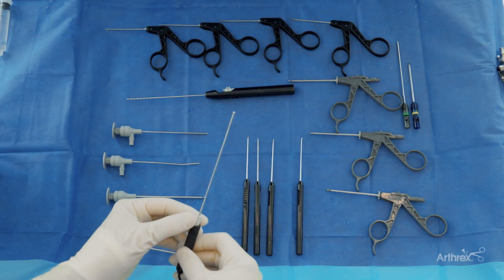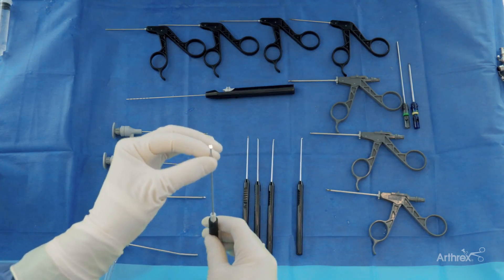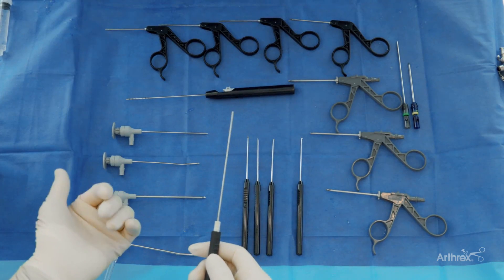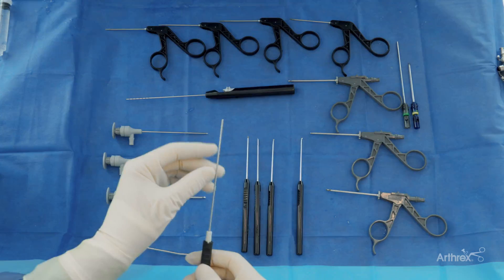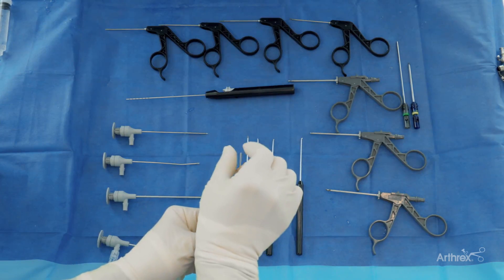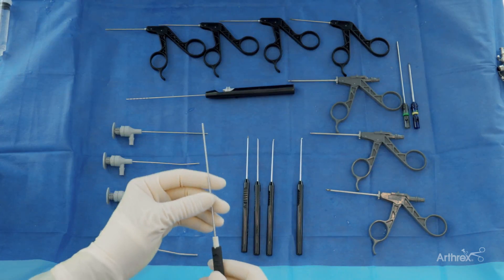This is the nanoscope. This is nanotechnology, and what we mean is it is tiny. This is a 1.9 diameter and this is for arthroscopy. What's really cool about this, different from what you're typically using, is it's a chip on tip — it's at the very end, which gives you a different field of view. You get a 120-degree field of view as opposed to just 90 with your typical arthroscope.